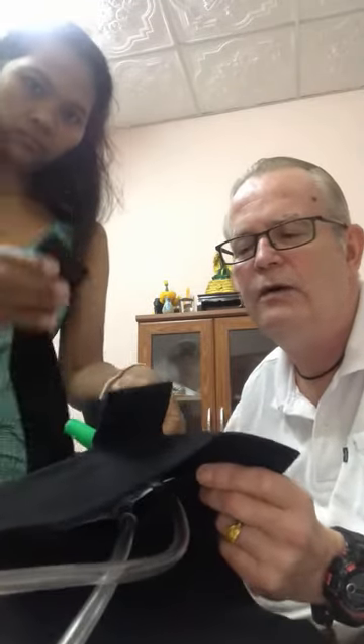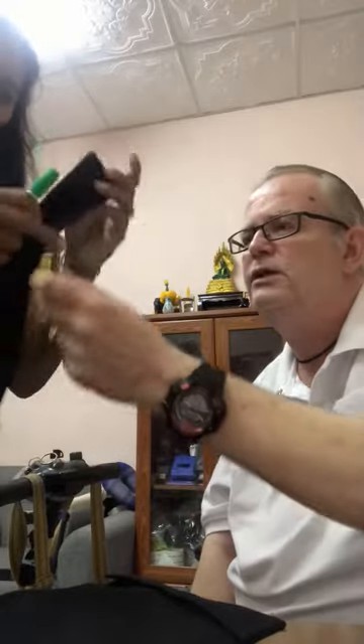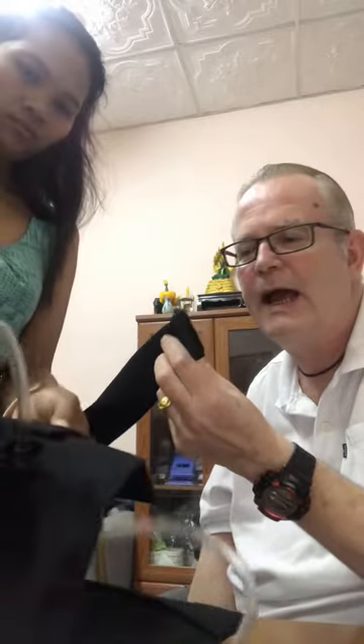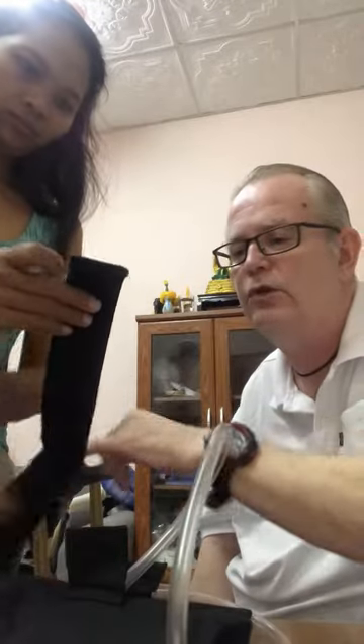What May's doing now is pushing the pipe through the top of this bag. She's now put that 2,000 milliliter bag in there and it fits lovely. Now she's going to put the pipe on. Two ways you can do this: you can either thread it through, or the pipe itself opens all the way down with the hook and loop.